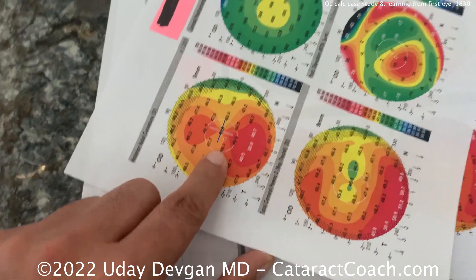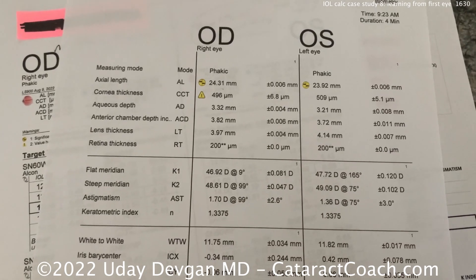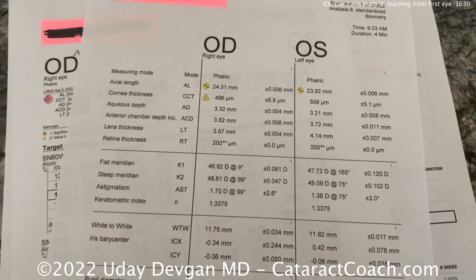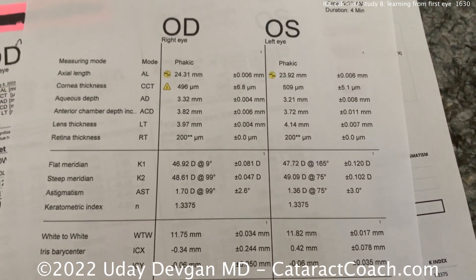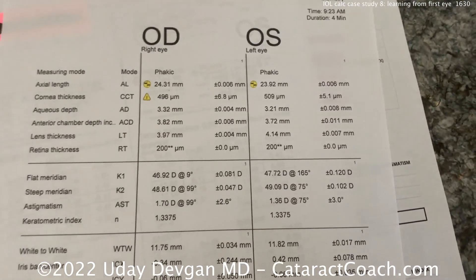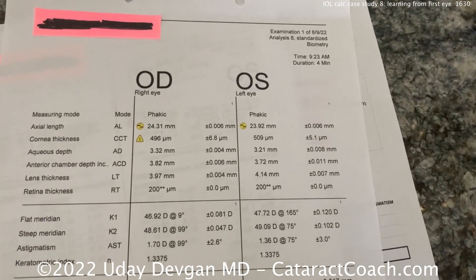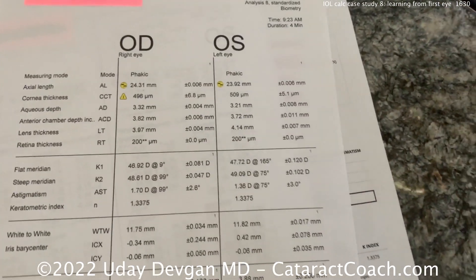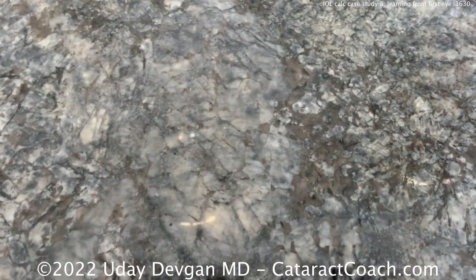When you have these steep corneas, a little bit longer axial length, a high degree of astigmatism, and a little bit of irregularity in the cornea — that's okay. So how do we calculate now for the second eye? At minus one with an extended depth of focus lens, he's very happy with the first eye. The question is, what do we do for the second eye?